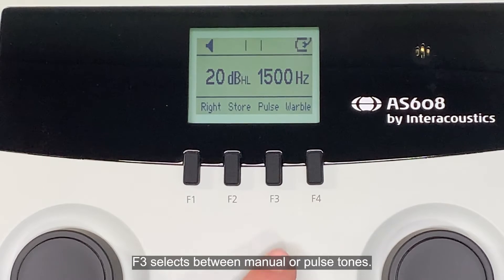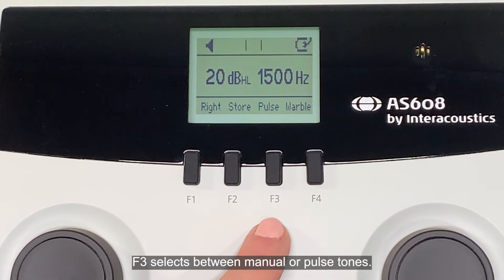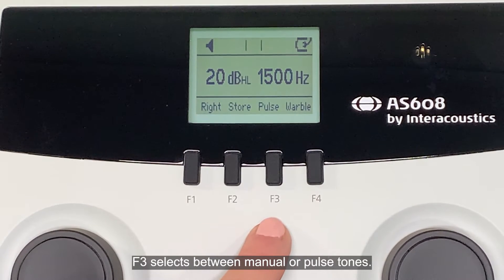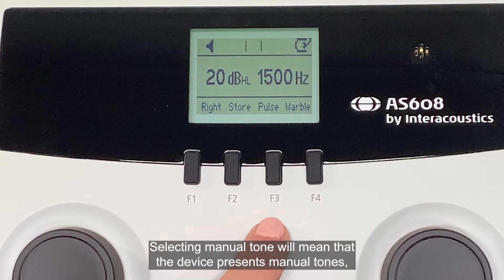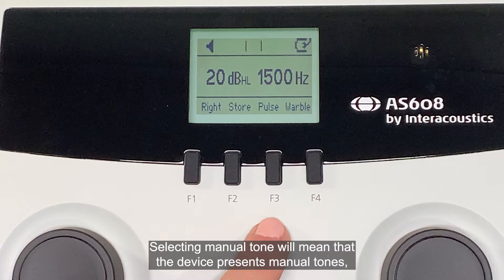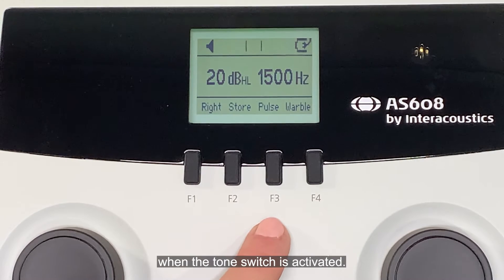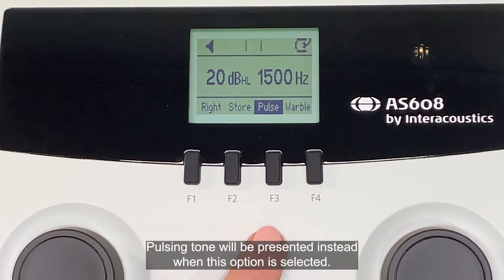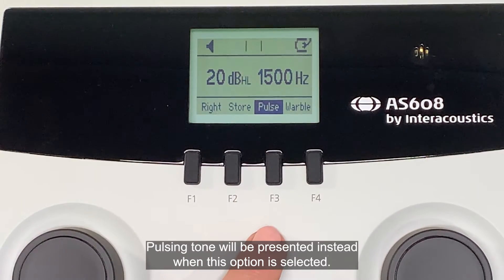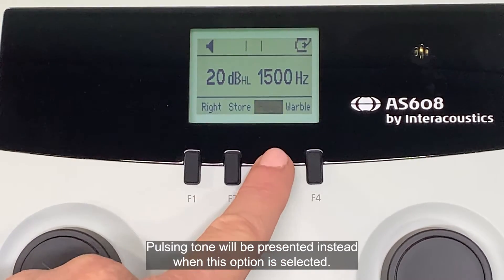F3 selects between manual or pulse tones. Selecting manual tone will mean that the device presents manual tones when the tone switch is activated. Pulsing tone will be presented instead when this option is selected.